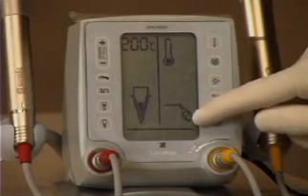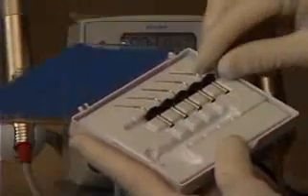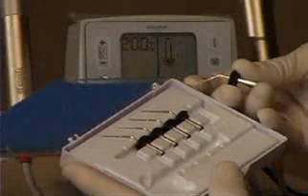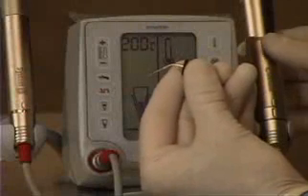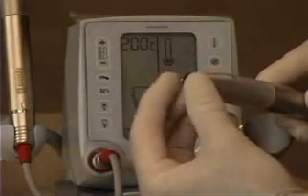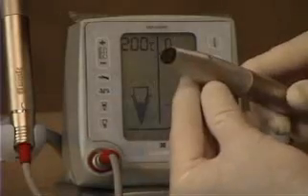This icon shows the cartridge is empty or missing. We open the cartridge case and remove one of the cartridges — it has the needle, the gutta percha, and the attachment nut. You can see that the needle is already pre-bent, which is very convenient. It's placed in the end of the extruder and simply rotated to lock it in place.